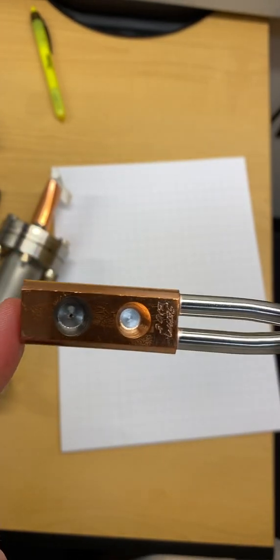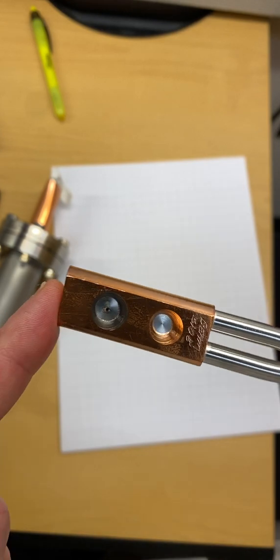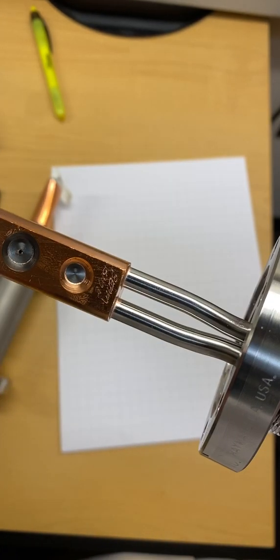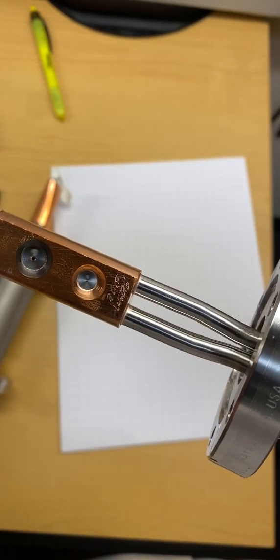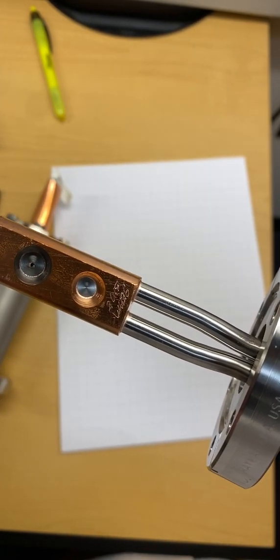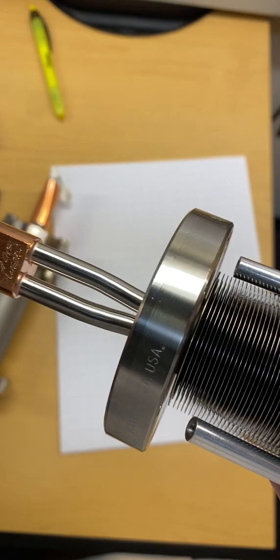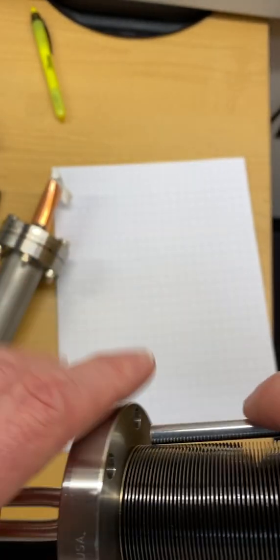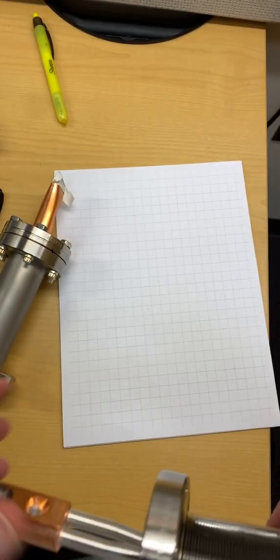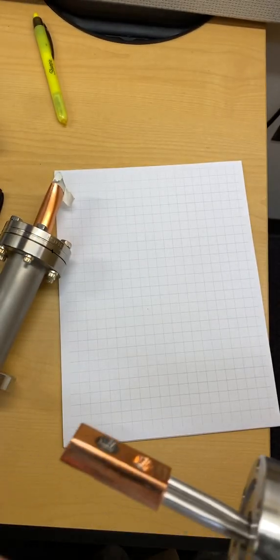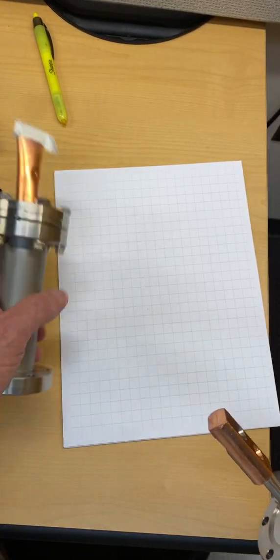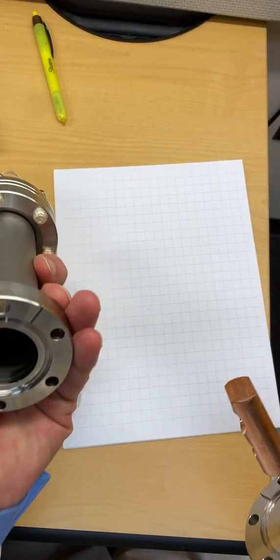So this target is x-rays only. It has water cooling. The LINAC has its own internal water cooling system and it also operates inside a vacuum and that's what the rest of this equipment is.